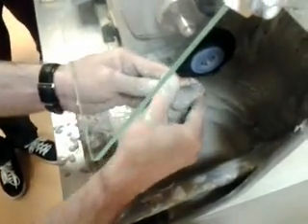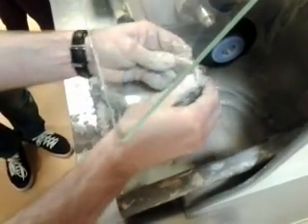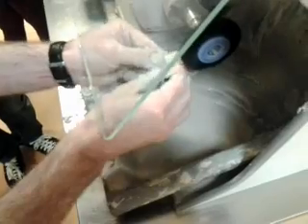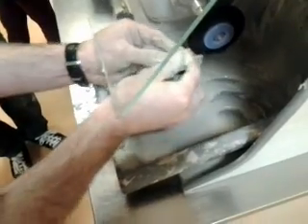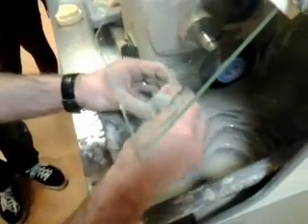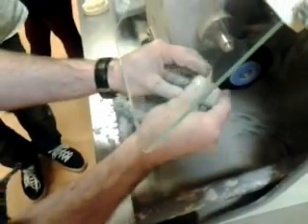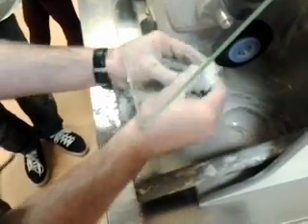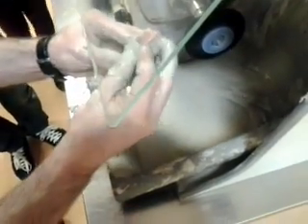I'm keeping the denture moving. Starting to achieve a nice finish there. Keep scooping and placing the pumice on.